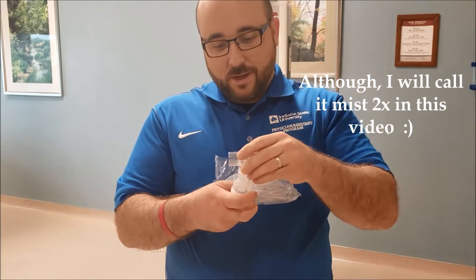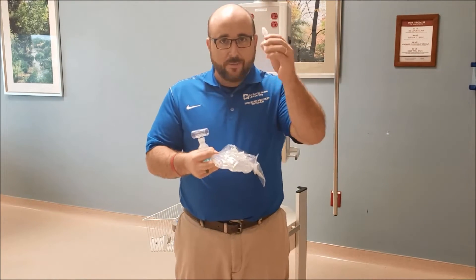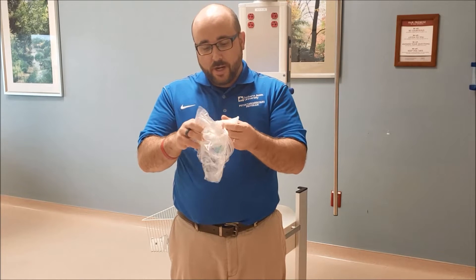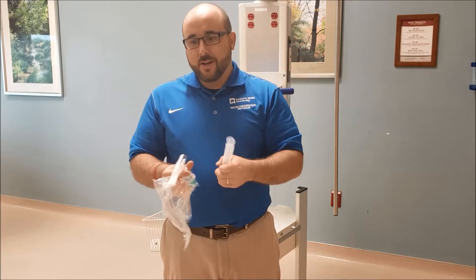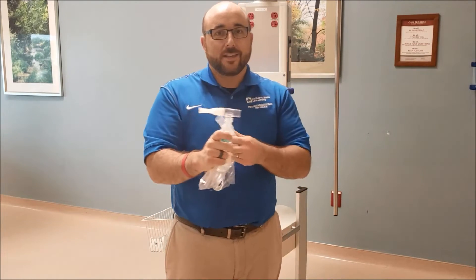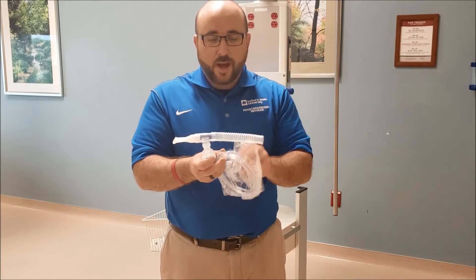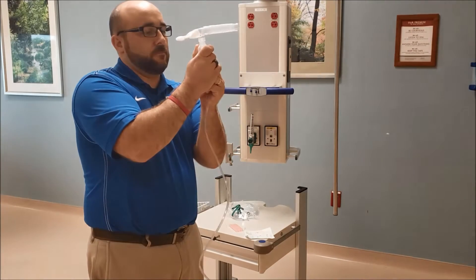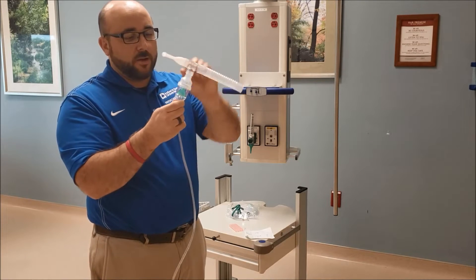This is a T. As you can see, it goes right on the top. We then attach the mouthpiece. When I'm attaching the mouthpiece for the patient, I make sure I don't touch the part that's going to be in their mouth. I usually use the bag to put that on. And then we have this reservoir piece. You may see a lot of nebulizers that just look like this without it, but I like to use it because it does allow them to get a larger amount of nebulized medication each time they take a breath in. And then there's simple oxygen tubing that connects to the bottom and runs to the flow meter.